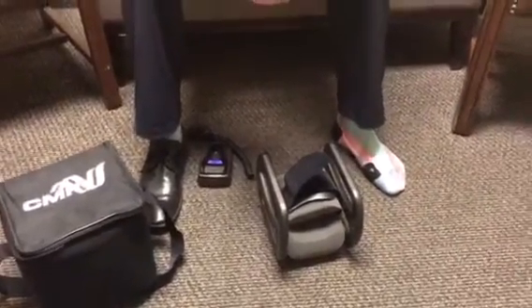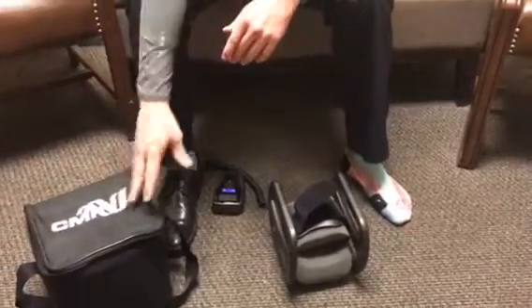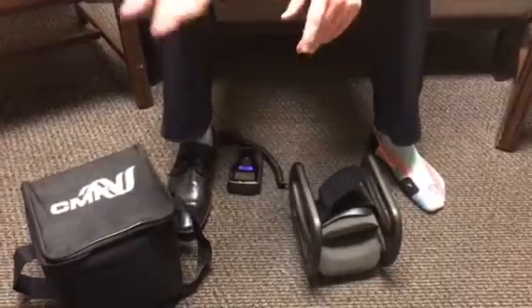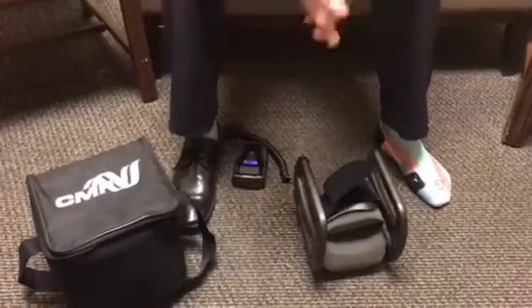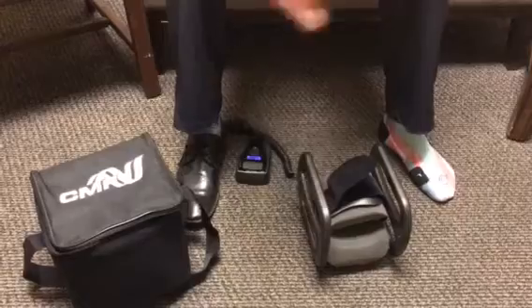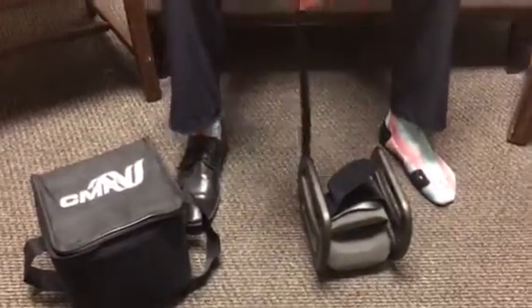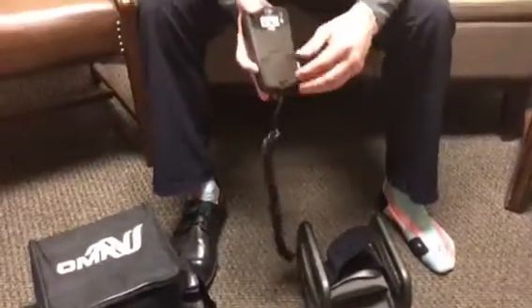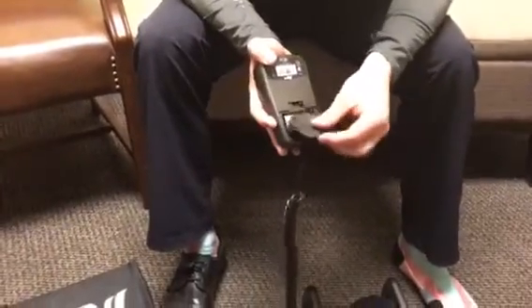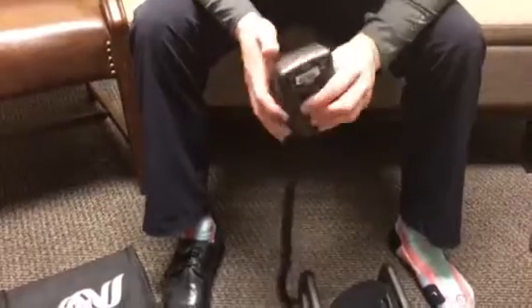Once you receive your OL-1000, you'll see a number of different items in the bag. You'll see some batteries, and you'll see an instruction manual. I would recommend that you go through the instruction manual to get to know your device. You do receive batteries for the Bone Growth Stimulator, and they are inserted and removed on the back of the interface module, the controller.